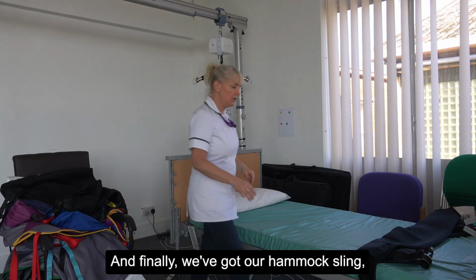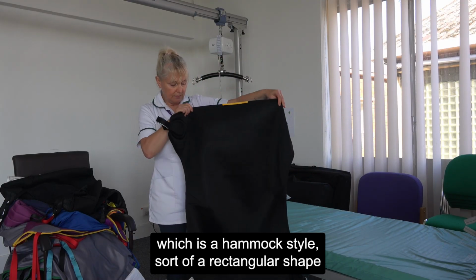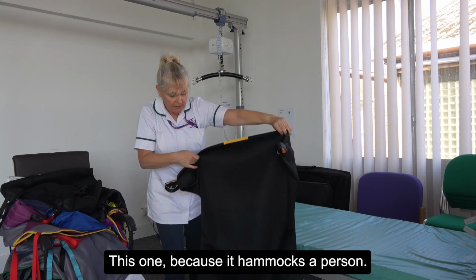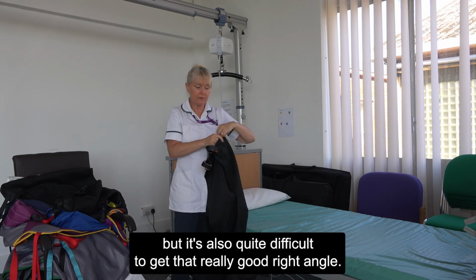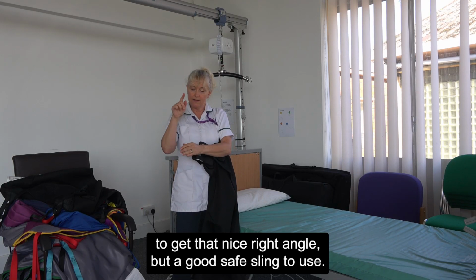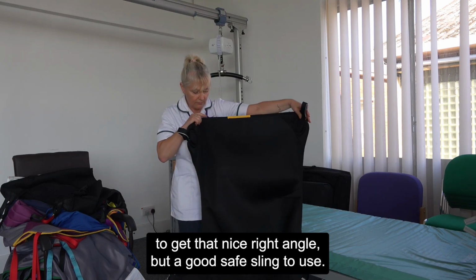And finally, we've got our hammock sling, which is a hammock style, sort of a rectangular shape with a cloth pommel coming up through the legs. This one, because it hammocks a person, it's quite a nice, comfortable sling, but it's also quite difficult to get that really good right angle. So when transferring somebody into a chair, it can be a bit tricky to get that nice right angle. But a good, safe sling to use.